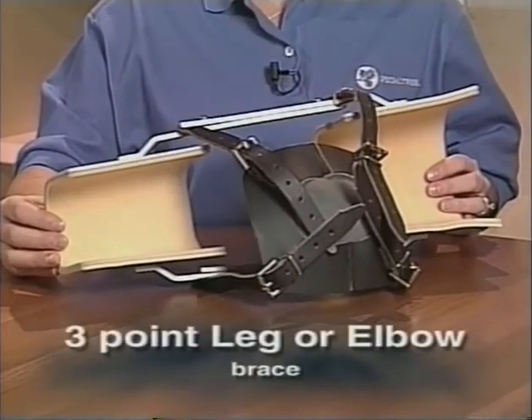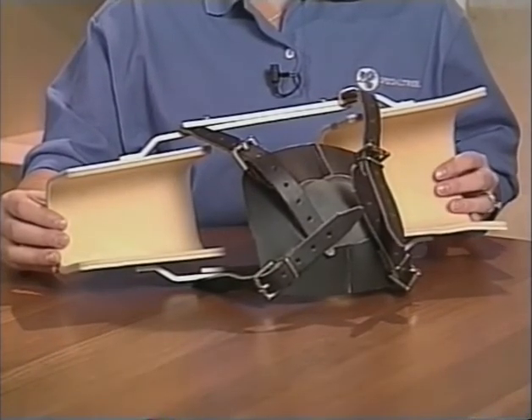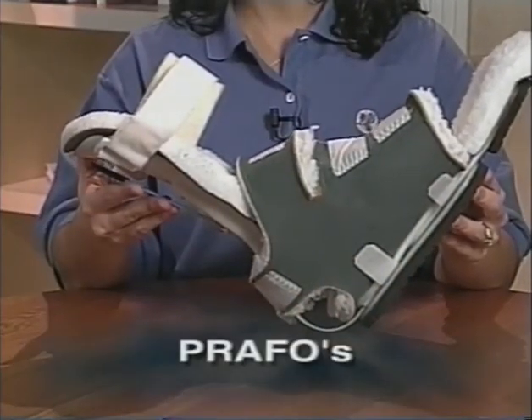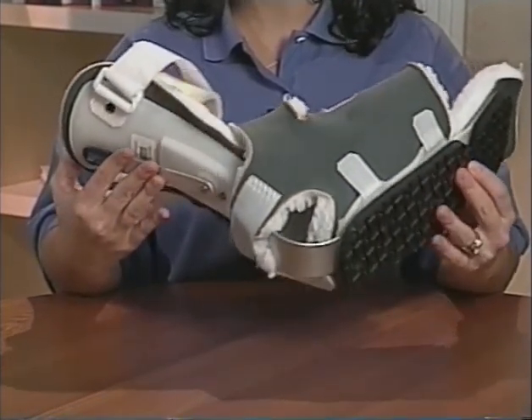The 3-point leg or elbow brace is similar to the Ultraflex in that it has an upper and lower cuff with a knee strap to fit securely over the joint. Prafos are boot-type orthotics usually worn in bed to prevent heel cord or tendon shortening.